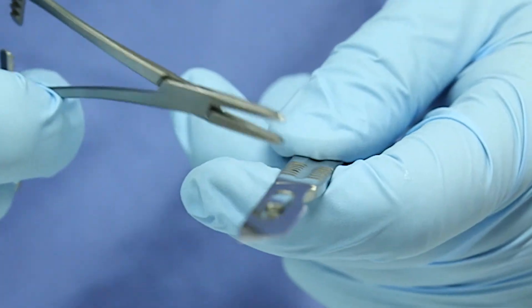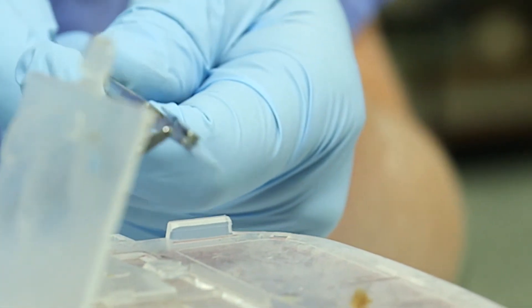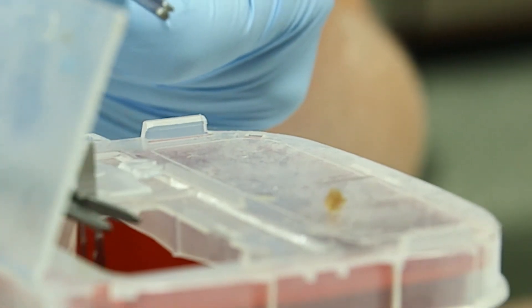Then take your forceps, hemostat, or needle driver, place one end through the edge of the blade and gently drop it into the sharps container.